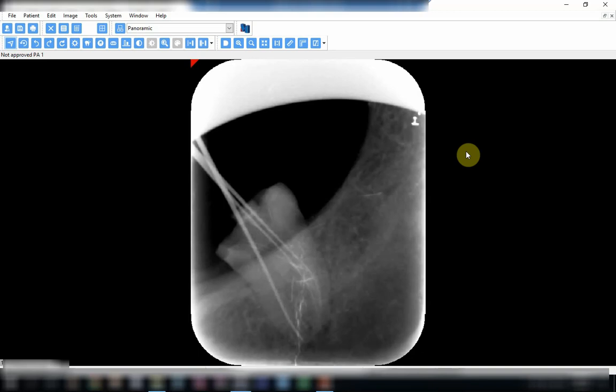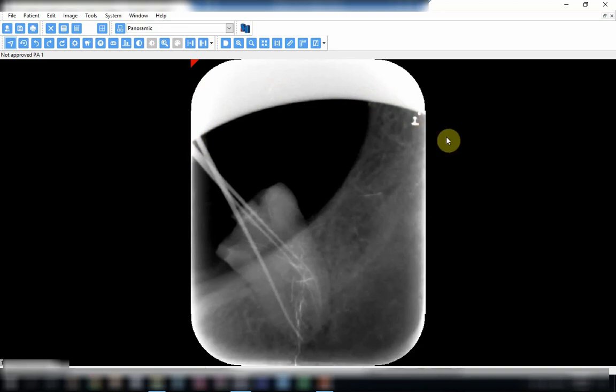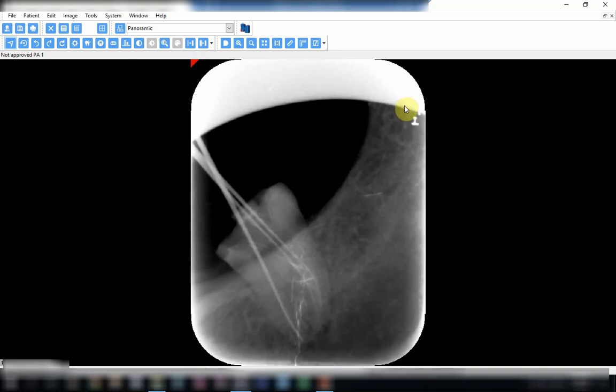If the cone does not completely cover the X-ray sensor, we will end up with an image just like this one. See this circle over here? This circle exactly matches the inside of the cone. Here, all this part has X-ray. Just outside the cone, there is completely no X-ray allowed to pass by the action of the collimator.